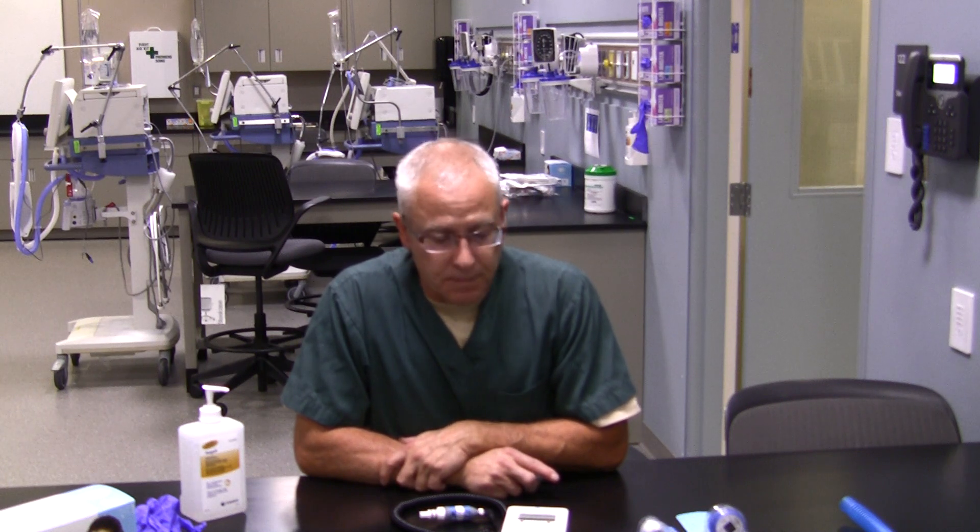If you're using a ventilator, for example, there will be an oxygen monitor built into the ventilator somewhere. If there isn't, you need to add one. If you're using a high flow system, we'll typically have an oxygen monitor before the humidification device. An oxygen monitor or analyzer measures the concentration of oxygen in the gas mixture that a patient's going to get.